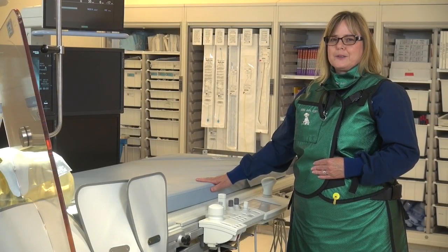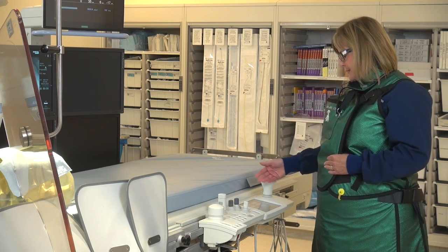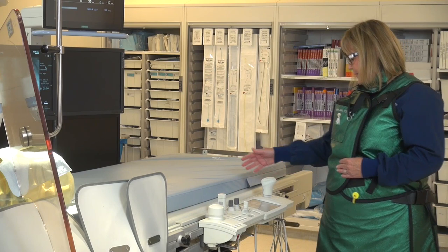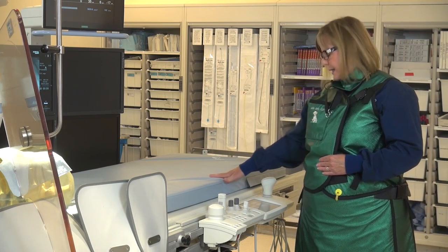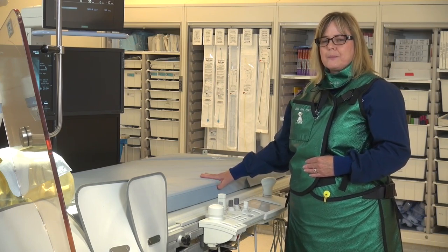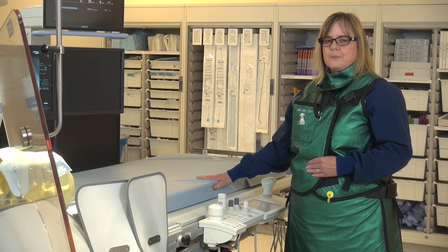I'm going to talk to you about what I do in the cardiac cath lab to drop down the dose to my patients. The first thing I do when I come in is I'll look at the touch screen to see where the pulse sequence and the frame rates are, and I'm going to drop those down in the imaging. Right now on this unit it's set at 15 on the pulse sequences — that's what we would be using under fluoroscopy mode. And looking at the acquisition mode, the frame rates are set at 15. So I'm going to drop down from 15 pulse sequences and 15 frame rates down to 7.5 on both of them.